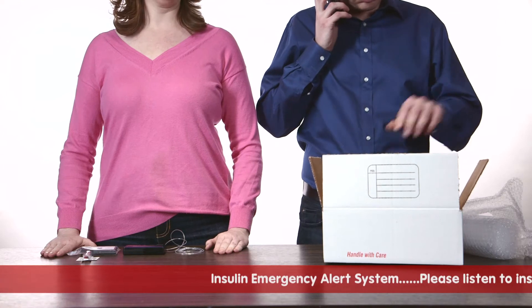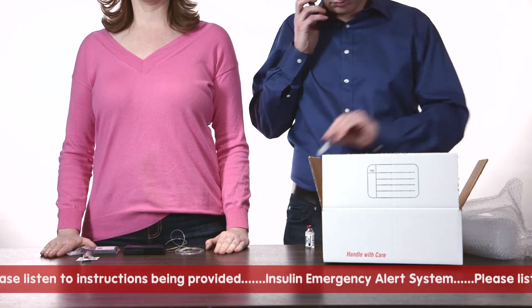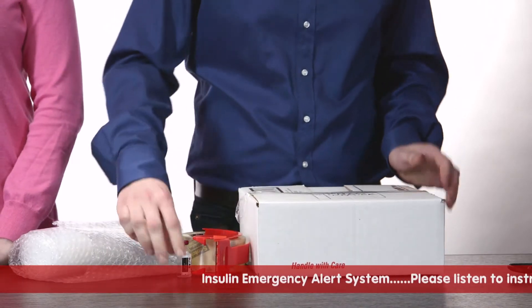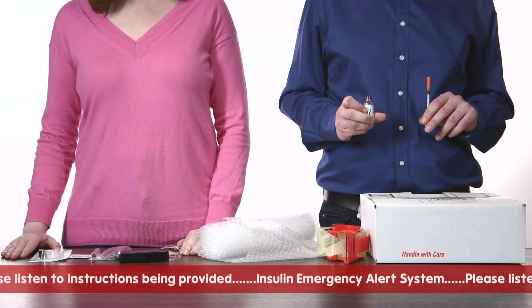If you do not have a snap pump, please prep your pump for shipment so you can receive a replacement pump. In the meantime, remain calm and keep your backup insulin syringe and vial of insulin handy. You will need to use it for approximately 24 hours.